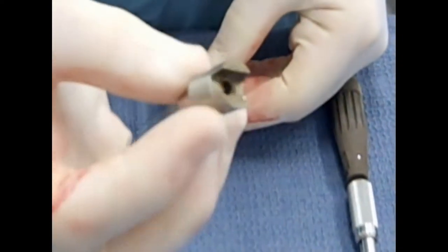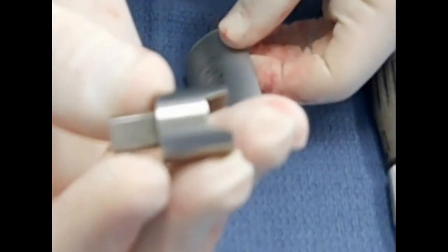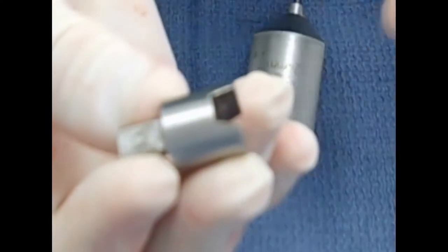We're going to show a short video about the use of the IMEX Blade Adapter, which you see here, that fits the blade on this end and the saw on this end.